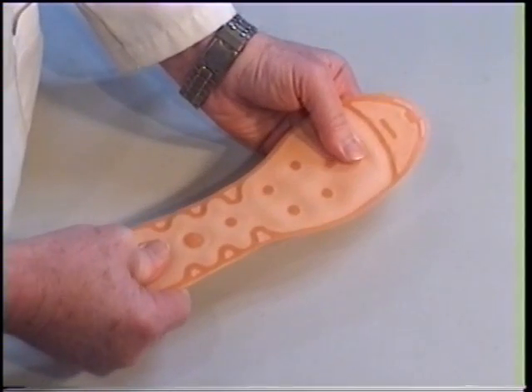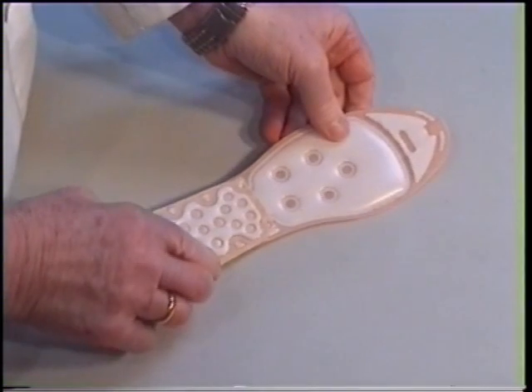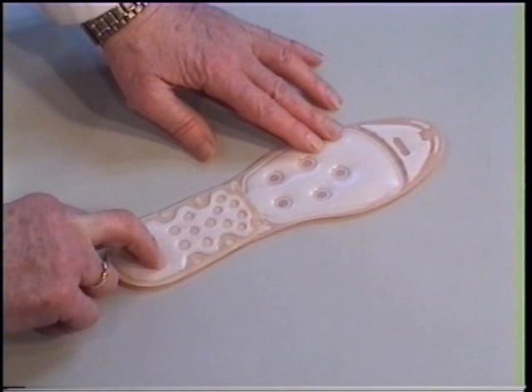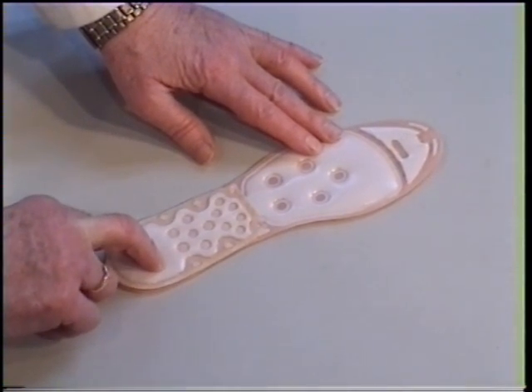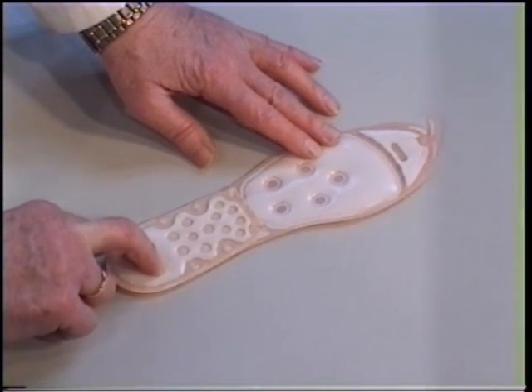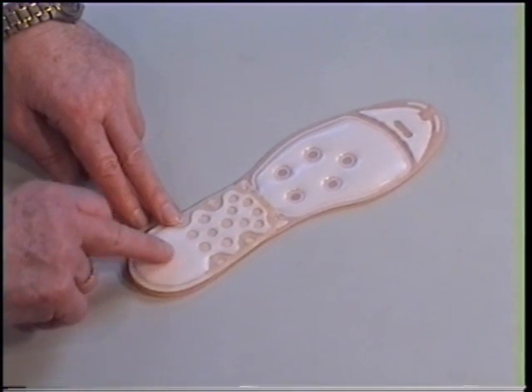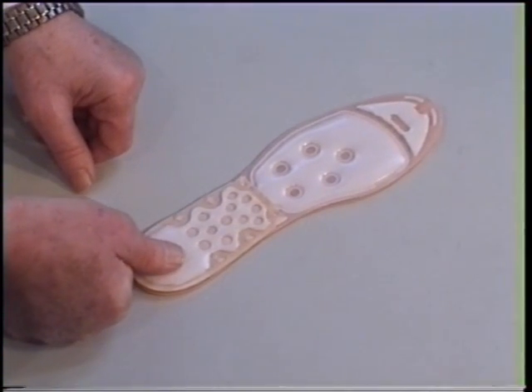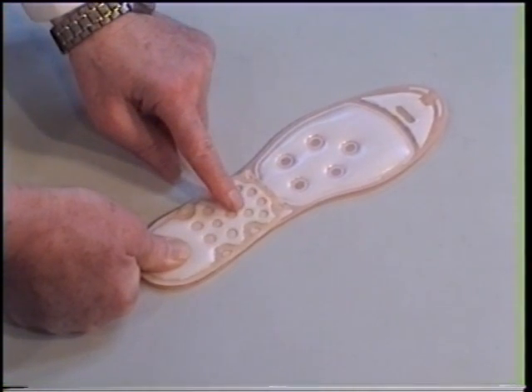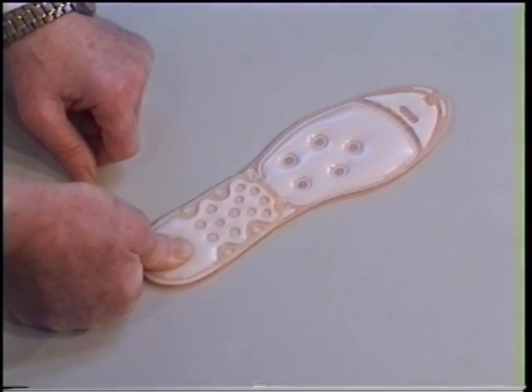The MEDICOVI Twin-heels are a combination of a sensory water-filled massage sole with an underlying welded-on and patented water-filled heel protector. The patented water-filled heel protector provides a great amount of shock-absorbing and ongoing pressure relief. The heel protector is designed to allow an overpressure in the chamber under the heel. A small amount of water is being pushed up in the spring element when the heel is being pushed downwards into the heel protector, but always allowing a protecting water cushion under the heel.